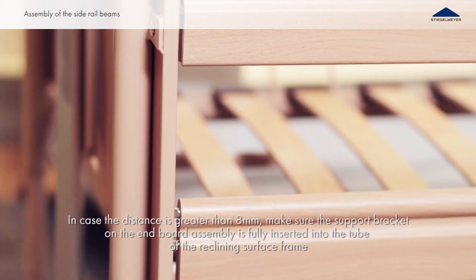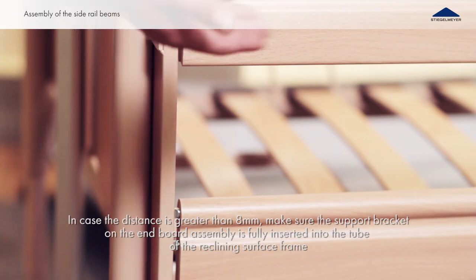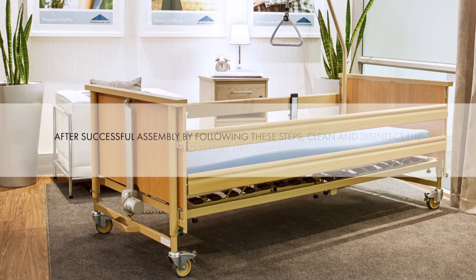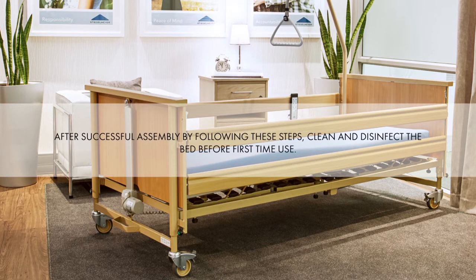Check the distance between the beam and the guide track. It should not be greater than 8 millimeters. After successful assembly by following these steps, clean and disinfect the bed before first time use.